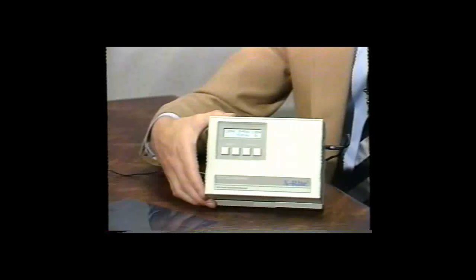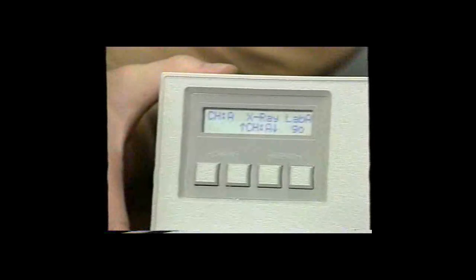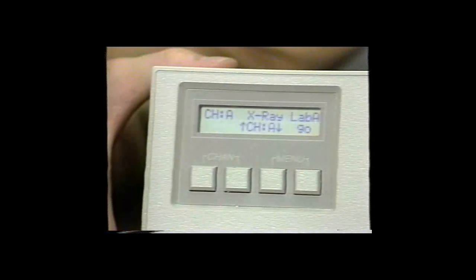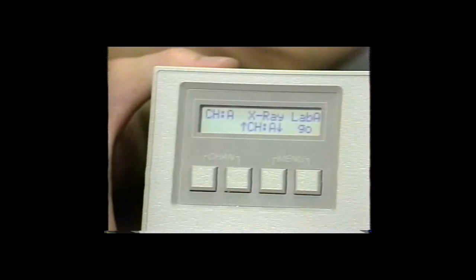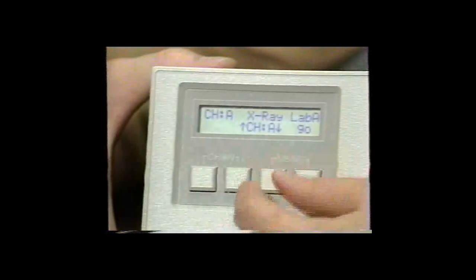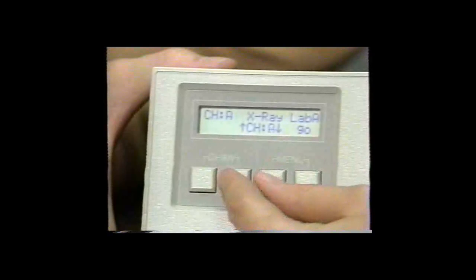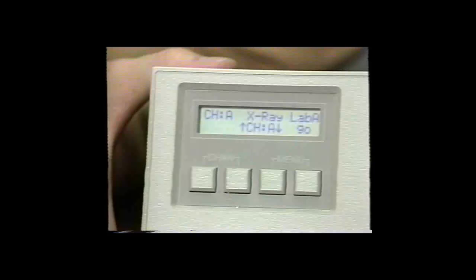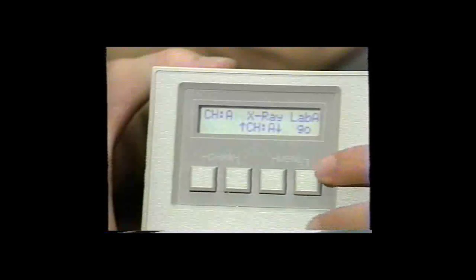When the 381 finishes reading a control strip, a channel indicator will be displayed. The densitometer gives you the option of storing that control strip in any one of the 12 channel locations. If the strip corresponds to the channel displayed on screen, no adjustments are necessary. However, if the channel is incorrect, it may be necessary to change to a new channel by following the keys directly underneath the arrows on the LCD display. One key causes the letters to go up, the other down. Stop at the desired location, then push the go indicator — the key directly underneath go on the LCD display.